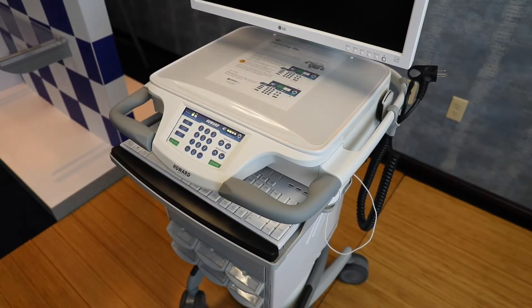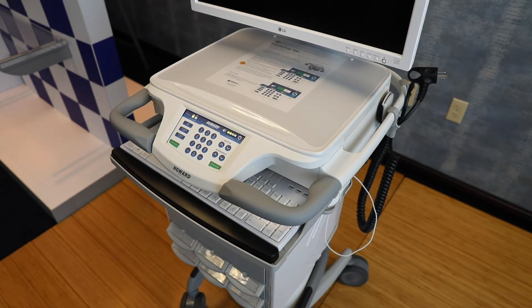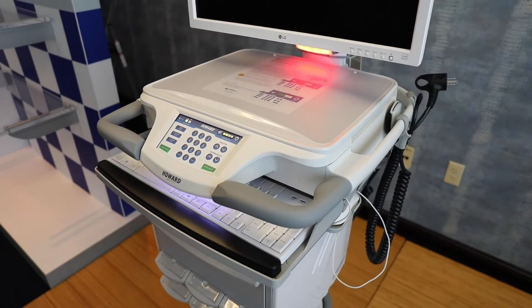After a few seconds, when you see the flashing red light, press the work surface up button once and the cart should automatically move to its maximum height. Please make sure that the cart is in an open area with no obstructions above the monitor or work surface while calibrating.